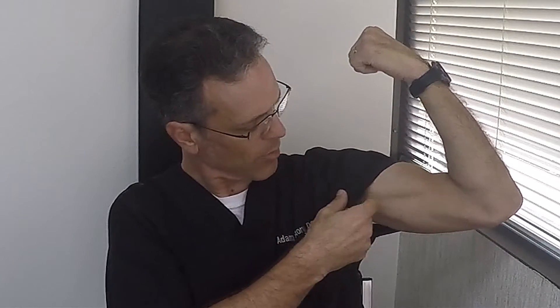The important thing to get an accurate reading is to make sure that when you put the blood pressure cuff on, you put it on correctly, because if you put it on incorrectly it can give you false readings. Put your arm through the cuff — there is a line on mine that says artery mark with a little arrow. The artery, if you make a bicep like this, is right underneath the bicep. Put the cuff on your arm and make sure that line is right where your bicep is. When you tighten it, get it just to the point where it's around your arm — not super tight and not super loose. You should be able to get two fingers in there.